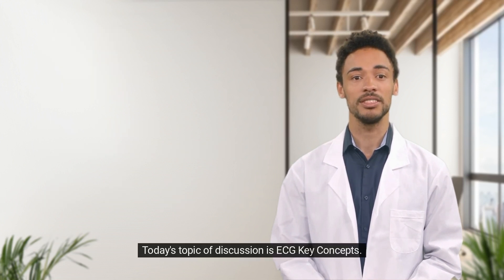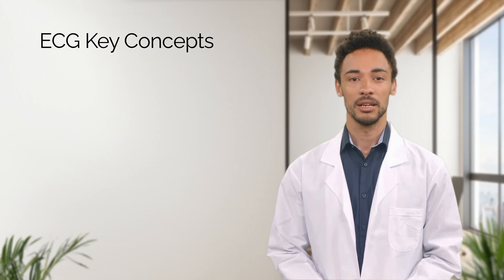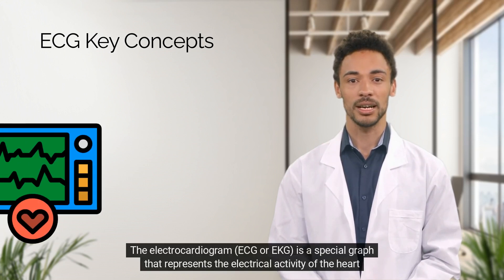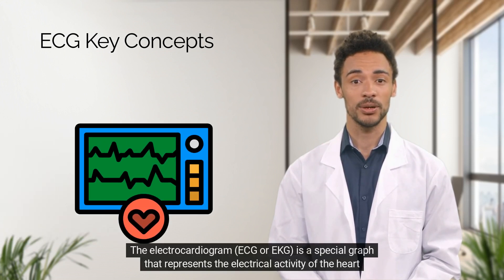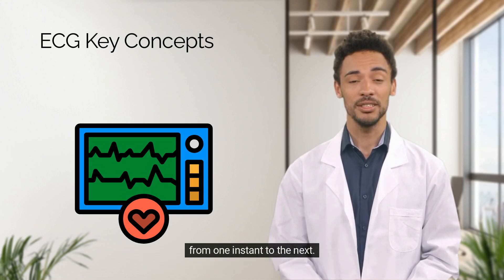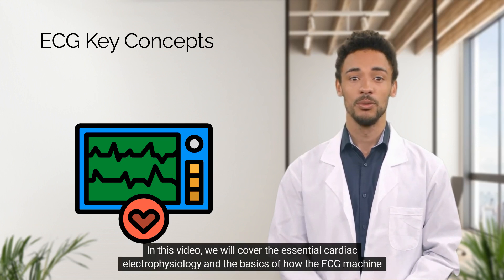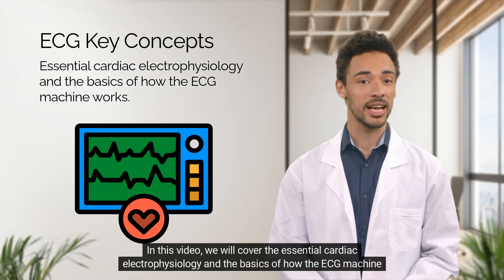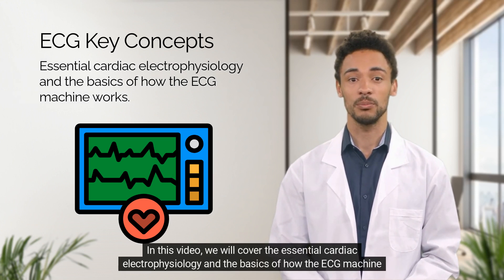Today's topic of discussion is ECG key concepts. The electrocardiogram, ECG or EKG, is a special graph that represents the electrical activity of the heart from one instant to the next. In this video, we will cover the essential cardiac electrophysiology and the basics of how the ECG machine works.